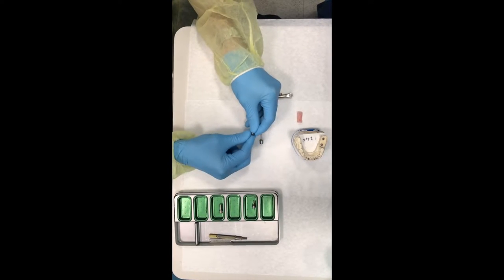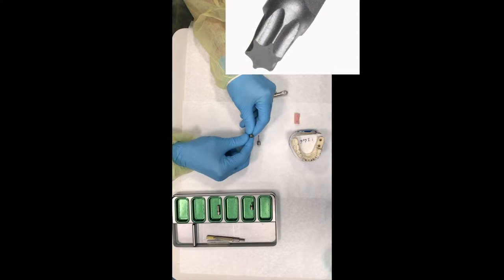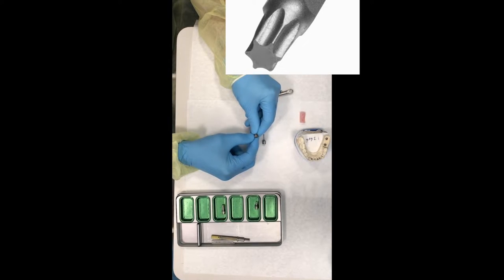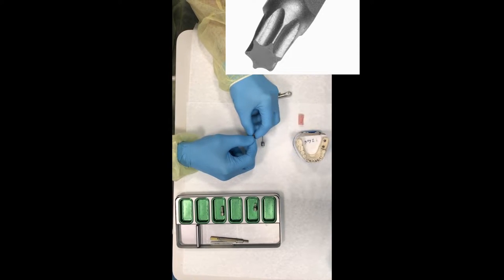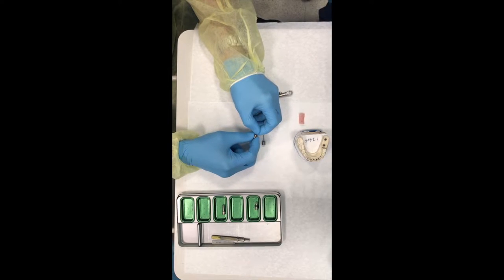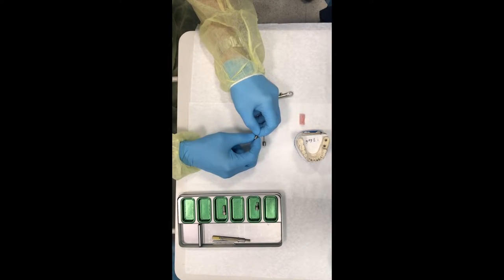The length is from the top of the driver to the end. 27 is long, 21, and 15. The end of the driver is like a star. We call it a Torx, T-O-R-X. It's the only Torx driver system implant connection system in the world, and it's attributed only to Straumann implants.